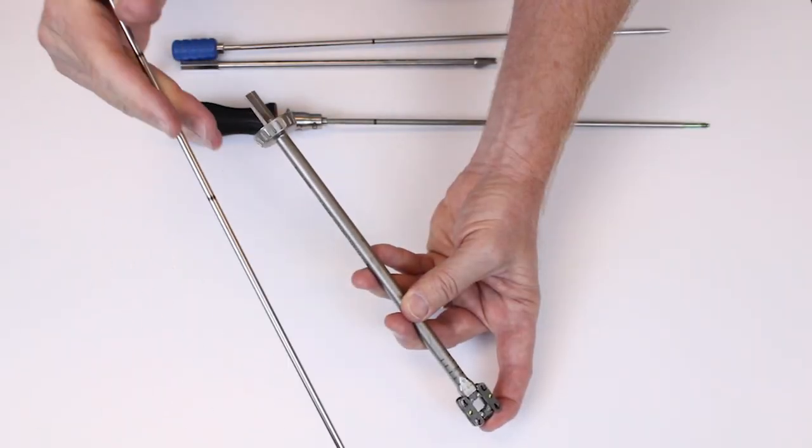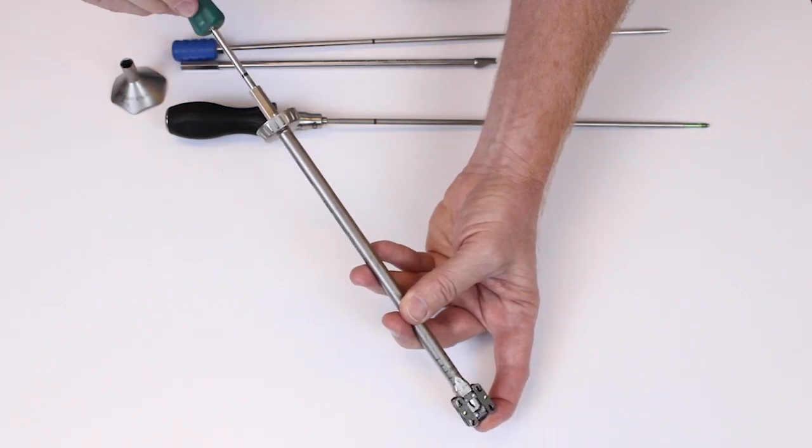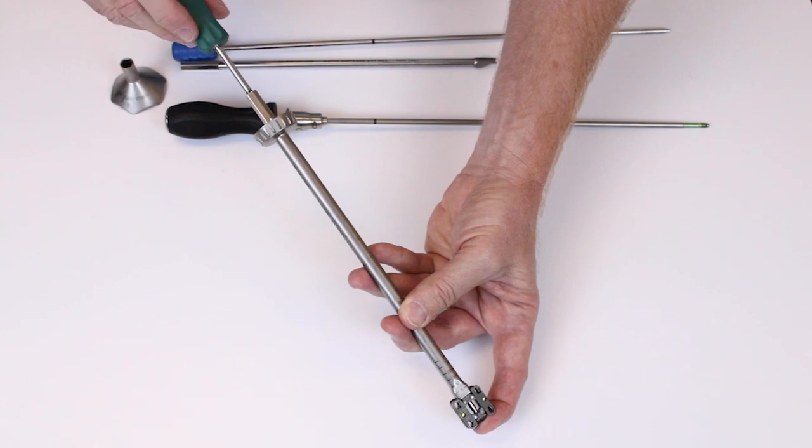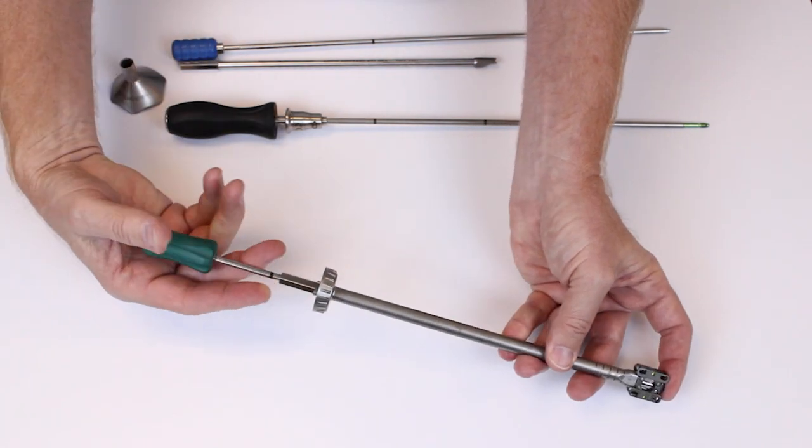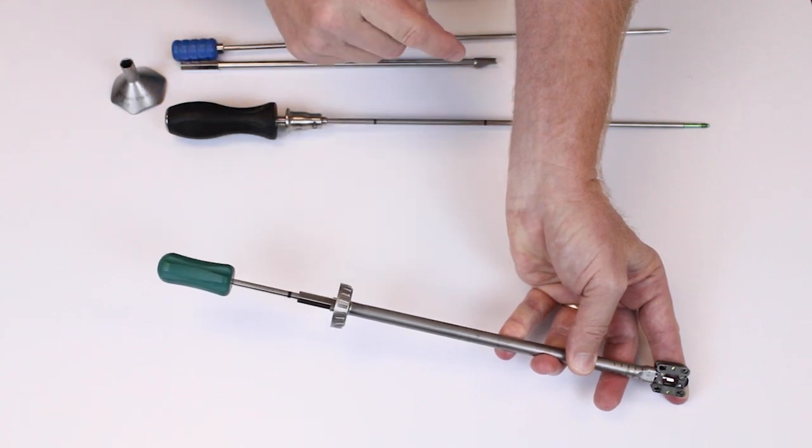Take the path clearing tool and just make sure that our tube assembly is co-linear with the implant and the threads of the nose. If not, the laser mark will stop short of the shoulder. Toggle the tube assembly until you're co-linear. The Dual-X implant is ready for the lockout screw.